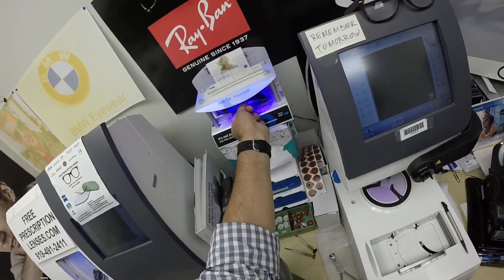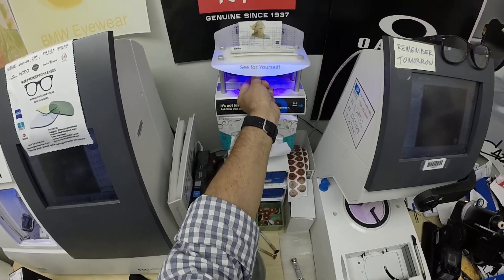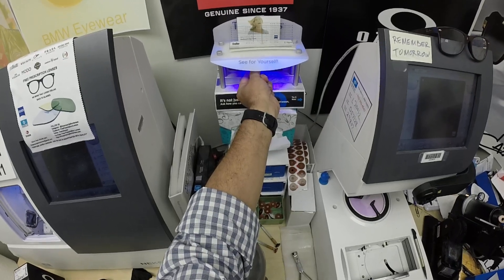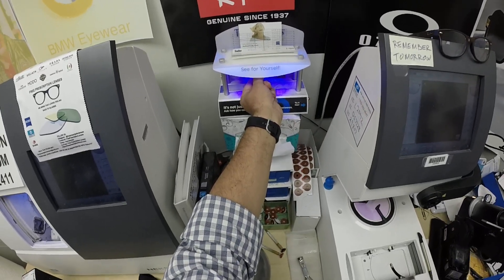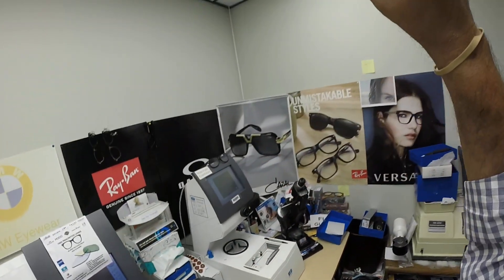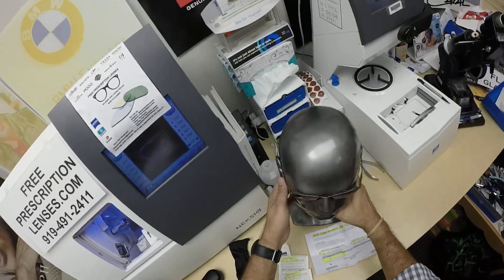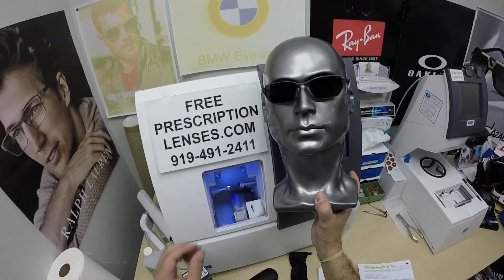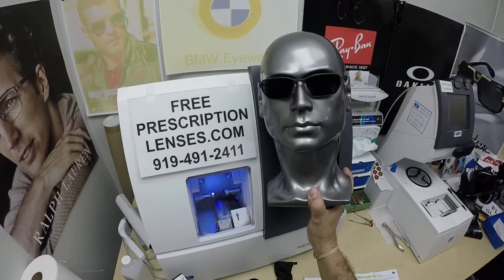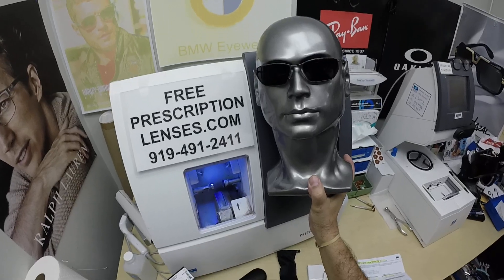After that, they will work for years at maximum performance. The only time they won't work perfectly is if you're behind the windshield of a car. Your windshield absorbs the sun's harmful ultraviolet rays — that's why they don't turn 100% in a car. These new Zeiss Photofusion lenses will get up to 30% dark behind a windshield. The other thing about photochromic lenses: they'll get darker when it's 85 degrees and below than when it's 95 and above.